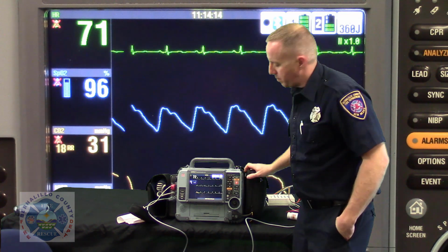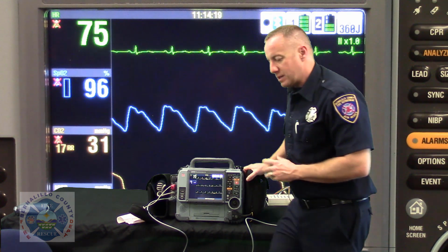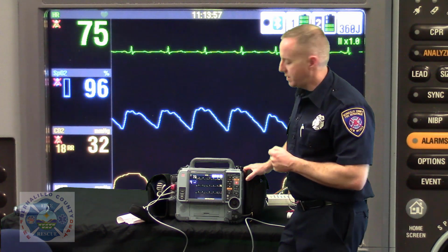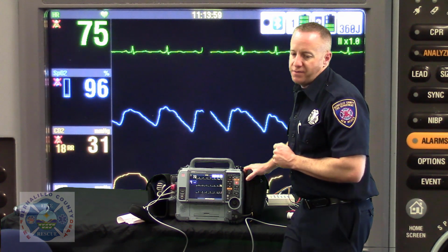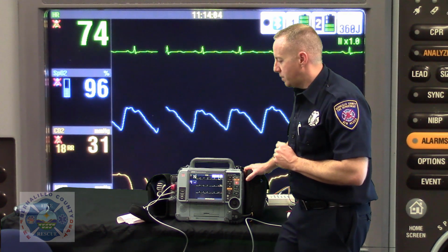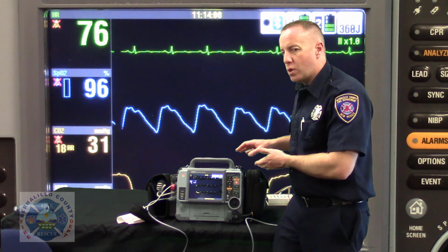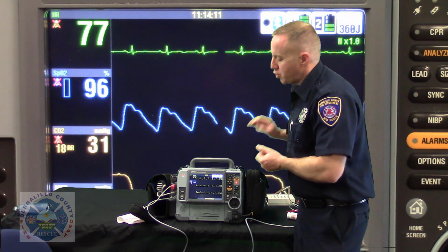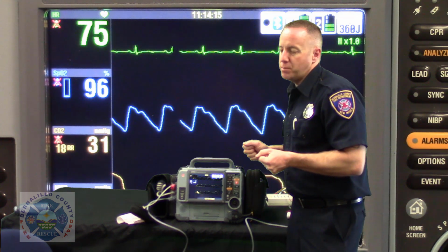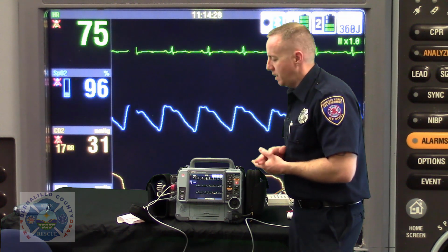Now, before we talk about patient demographic entering, I think it's important that we discuss why we have to enter the demographics correctly and concisely every time. It is really, really difficult to run a cardiac call flawlessly to the point where we identify acute coronary syndrome, transmit that EKG to the definitive care physician, for them to interpret that and make some really time-saving decision-making at the ER.